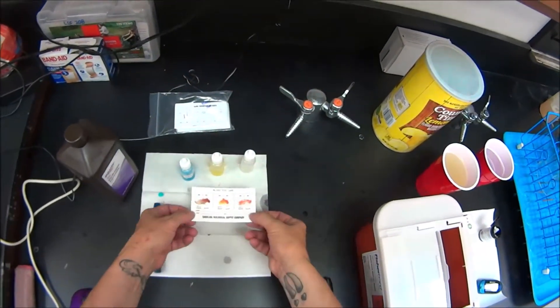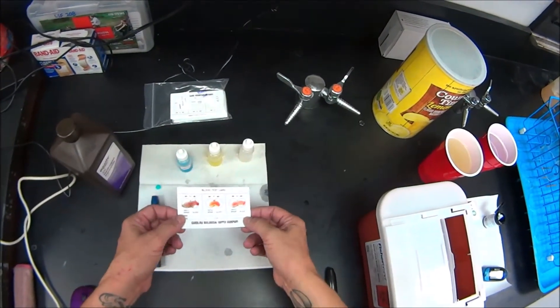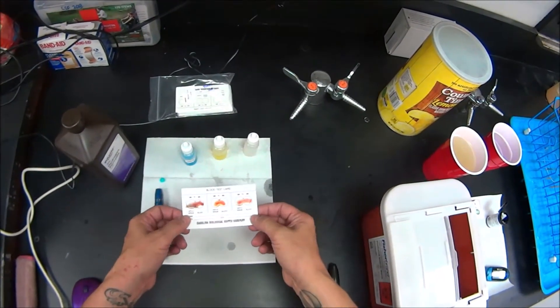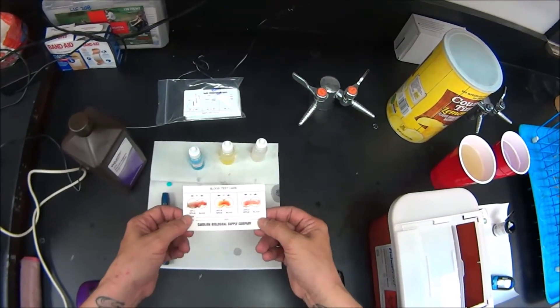Okay. So I'm going to rock this card because rocking helps speed the process. I see agglutination. Can you see agglutination?